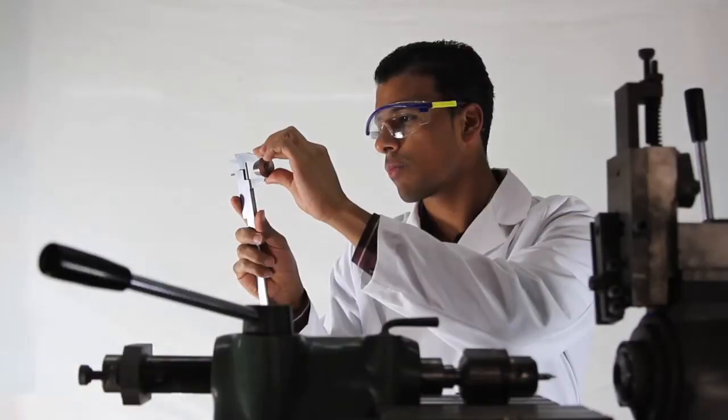One of the things we really value here at MDF Instruments is challenging convention, and you can call that whatever you want. Thinking outside the box or going against the grain. But we believe it's a major component of making really great instruments.